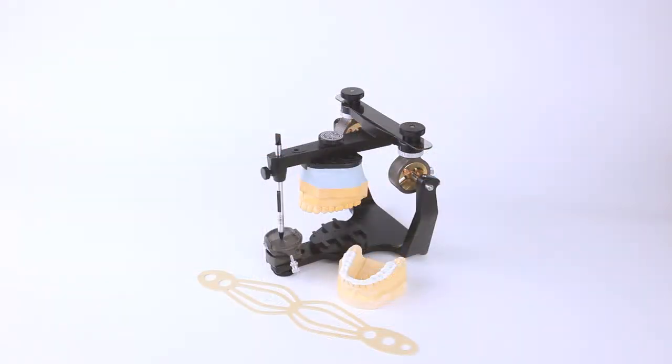As you can see from the armamentarium pictured here, there is no need for flame or heat for melting wax or crazy glue, sticks, paper clips, or any other items, therefore keeping the setup safe and simple.